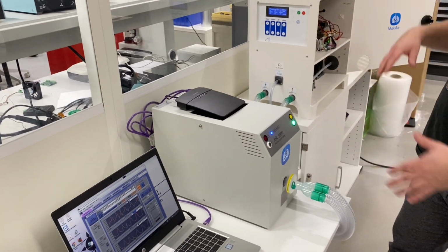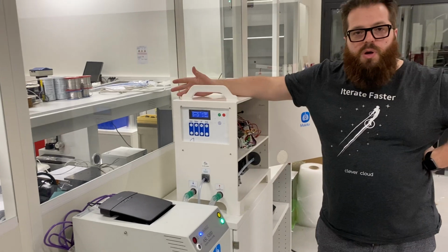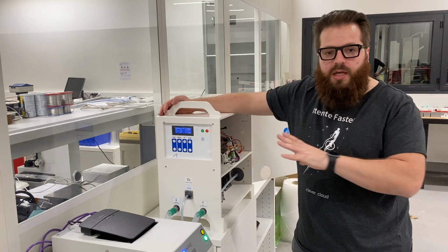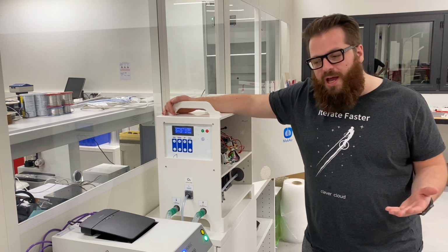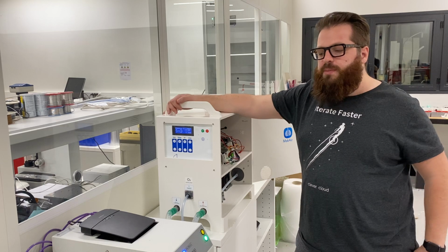So we have a real test procedure to make sure that everything will work according to the way we have designed it. We will quickly change the UI for something more beautiful, but also with more information, like all the curves and everything you will need.